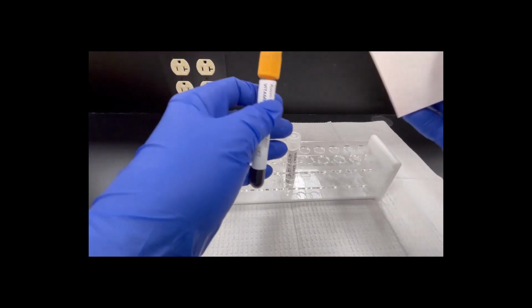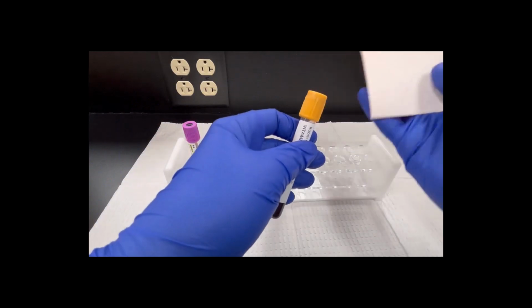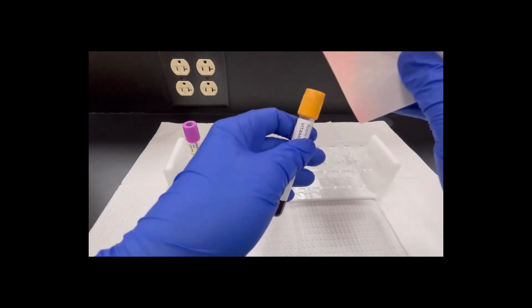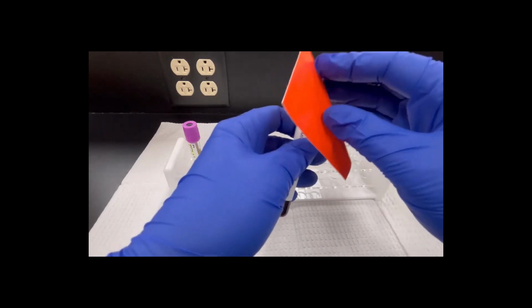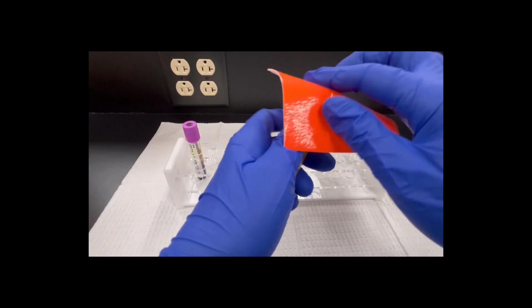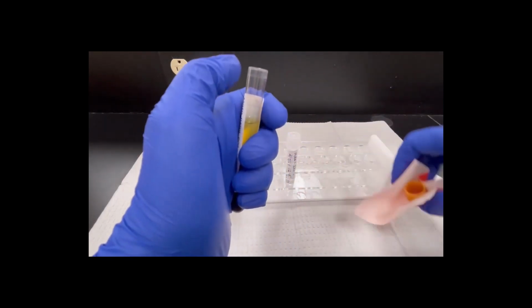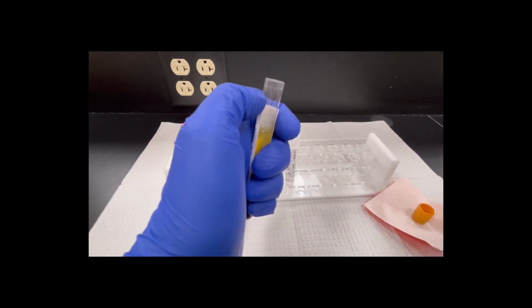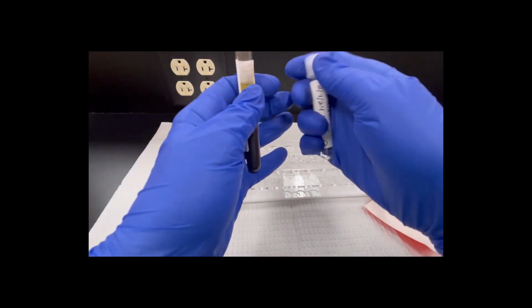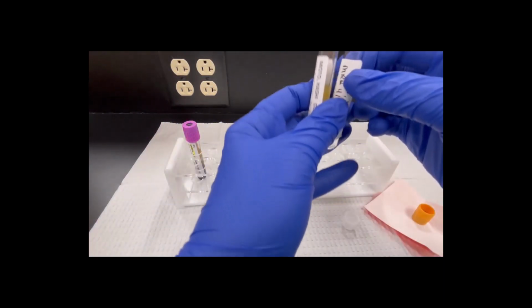So when I open these tubes, I'm doing it behind my protective glass. I'm going to put my barrier, my little orange BioWipe, over the top. This is going to help prevent aerosols from getting out if there are any, because remember these Vacutainers are under vacuum. So I'm going to put this over the top. I'm going to twist it off, and I'm just going to let it sit right there on the BioWipe, because when I get to that, I'll need to put it back on this tube. So this one, I can pop the top off of this tube and I can set it right down there.